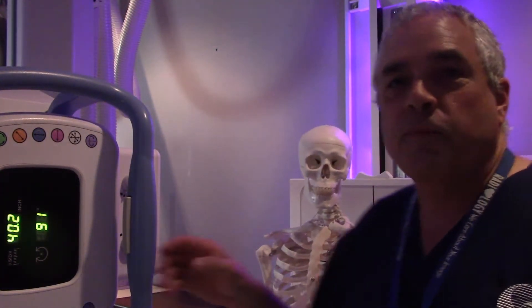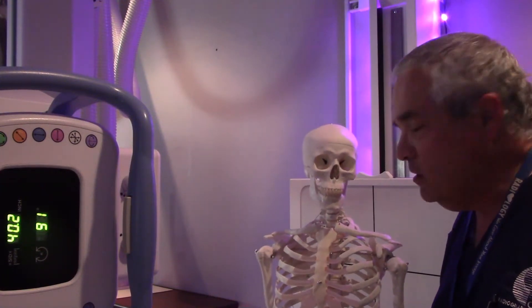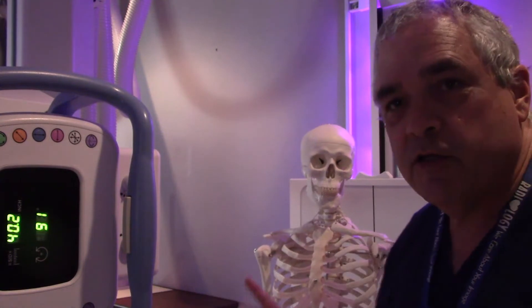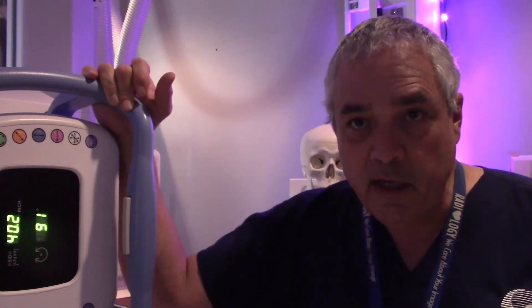I know you're probably thinking to yourself: if it's a skeleton, can't we just see if the bones are broken or not? Yes, we can. But I'm telling you, this is going to help us out. Today we're going to be talking about a little trick called the Y-View shoulder. This is one of those X-rays that people repeat a lot.